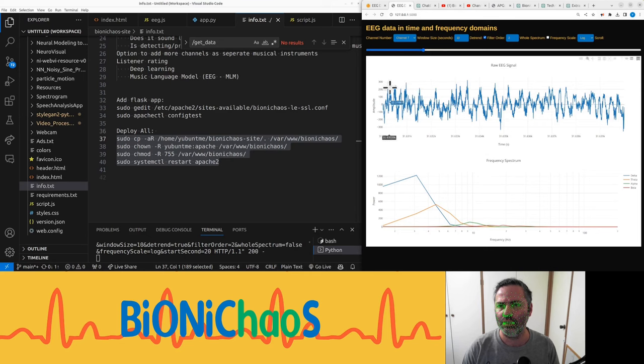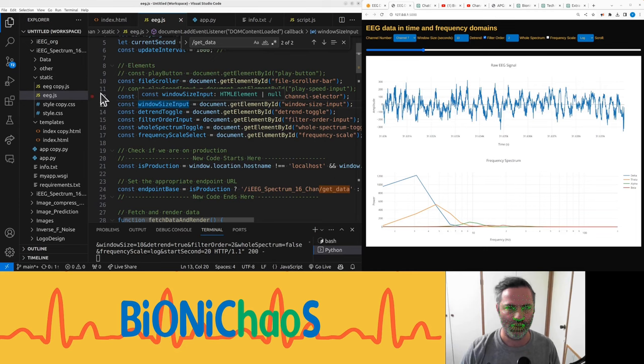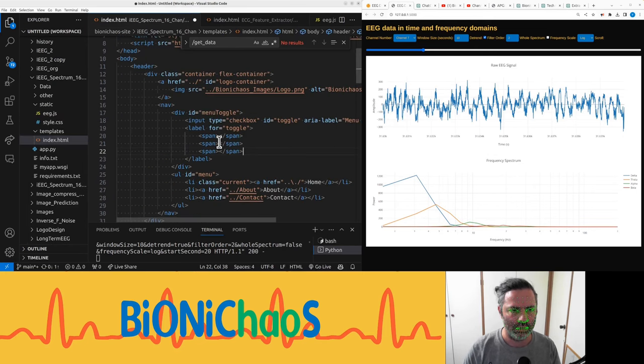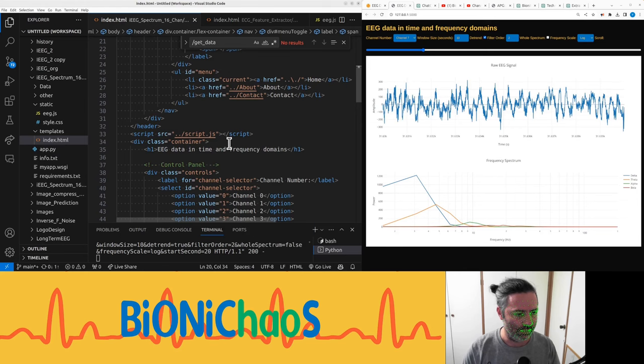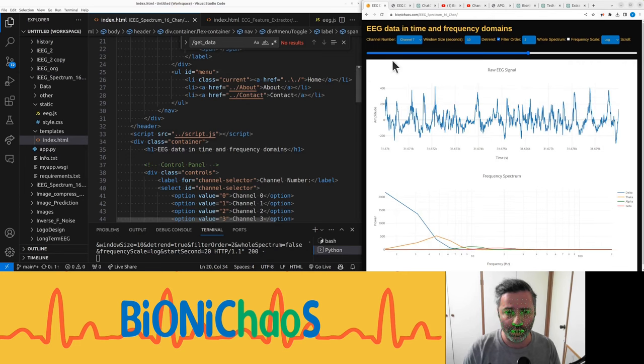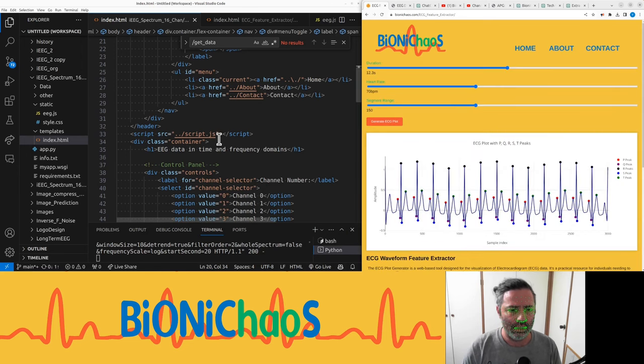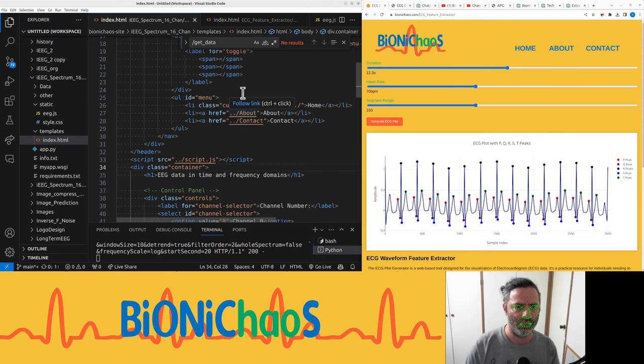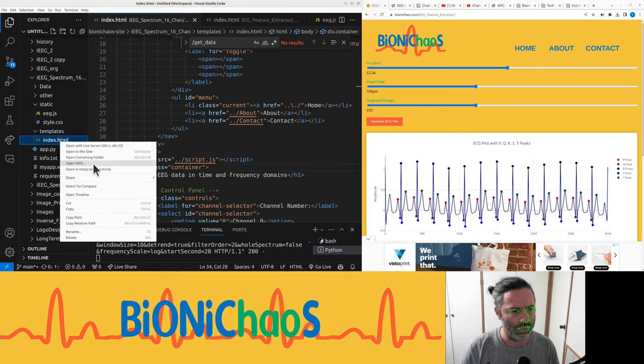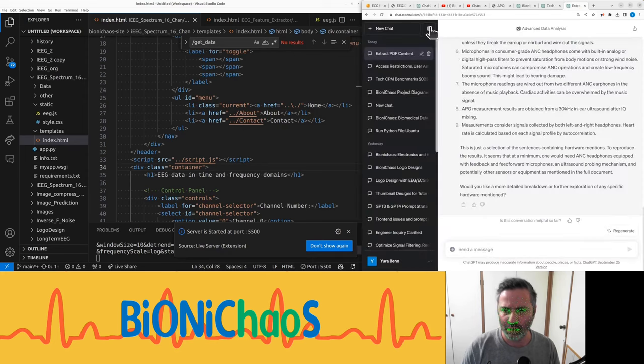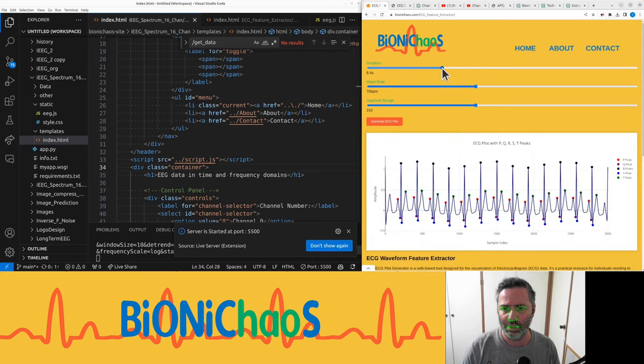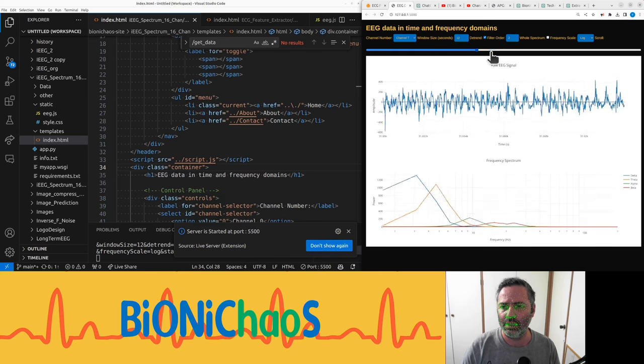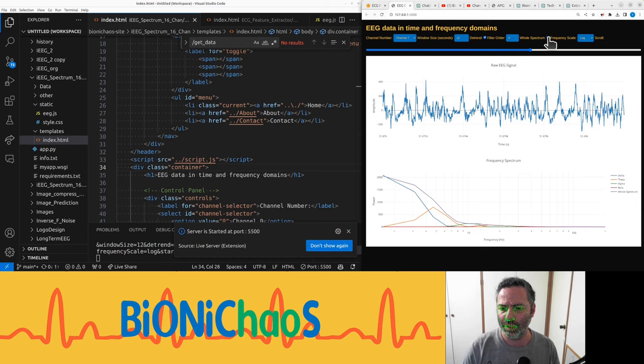Nice. So make a few changes, just clean it up a bit. In HTML, can delete these copies. This is a standard header for the project. So this is now in production, and we do want to add this standard header thing. And we also need to make changes to how it looks like. Yeah, this is not great. This is a Flask application, so you can't really test the HTML by itself. Which is a bit unfortunate, but that's just the way it is. So all the inputs working okay.